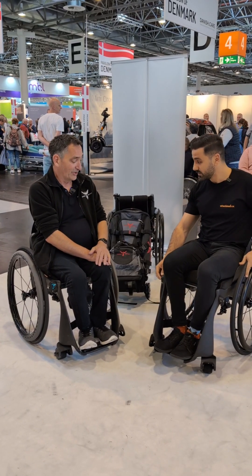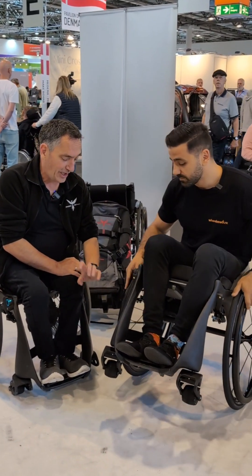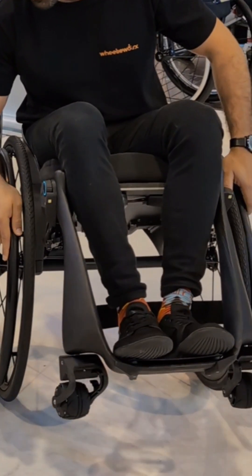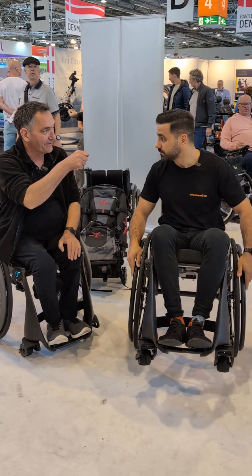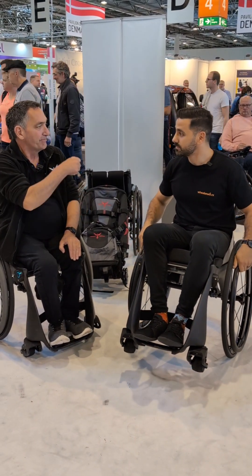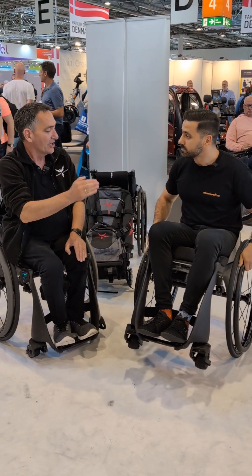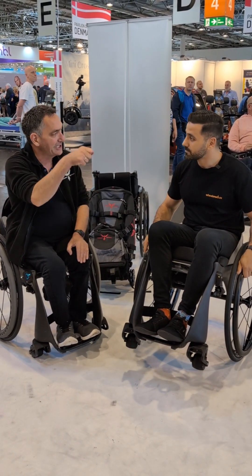How did you do that? We made it out of carbon fiber. We use very small, high-powered front wheel motors. You might think those are little wheels that are going to get stuck, but because these wheels have their own propulsion, they drive over stone chips, paving slabs that are loose — all these kinds of obstacles that a conventional front wheel will get stuck on. These keep going.